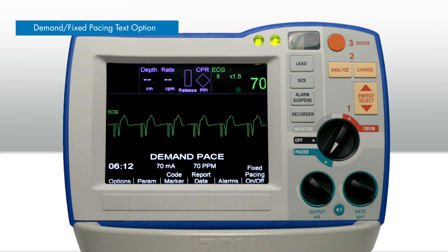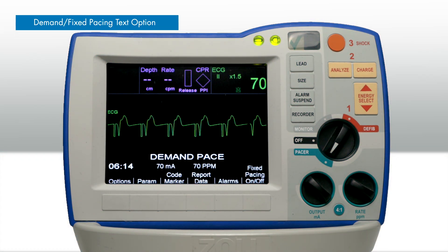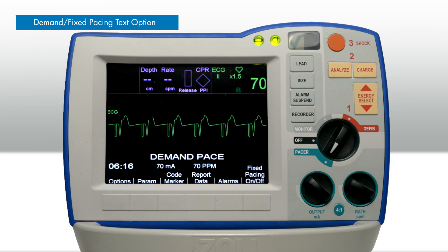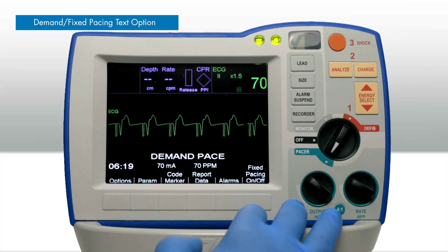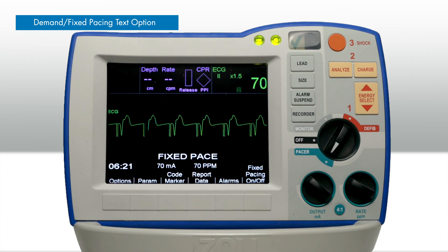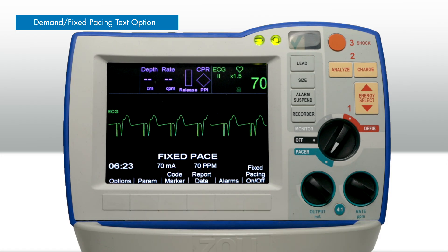A configurable option has been added to the device to change pacing text options from asynchronous and synchronous to fixed and demand, to match facility preference.